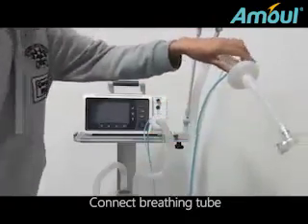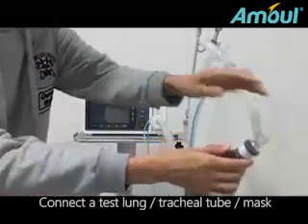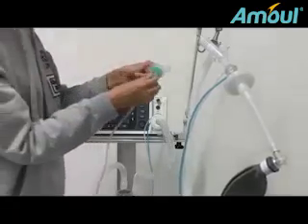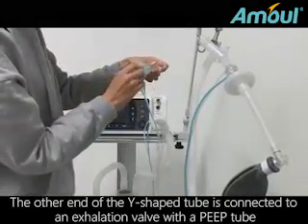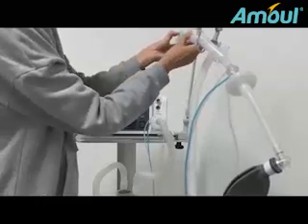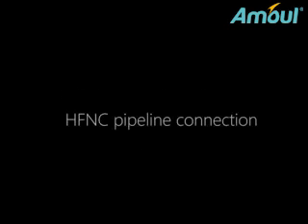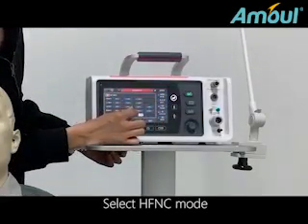Connect the breathing tube. Connect a test lung, tracheal tube, or mask. The other end of the Y-shaped tube is connected to an exhalation valve with a PEEP tube. HFNC pipeline connection. Select HFNC mode.